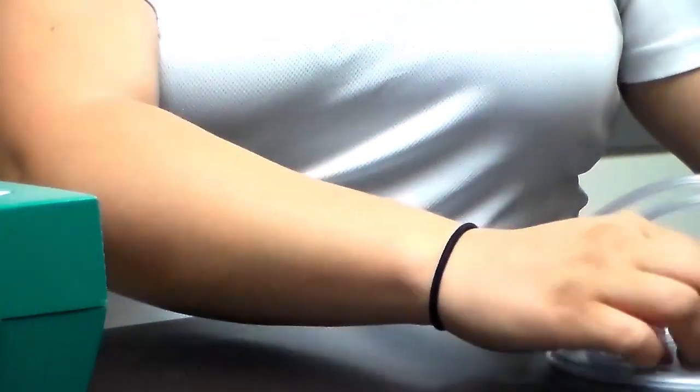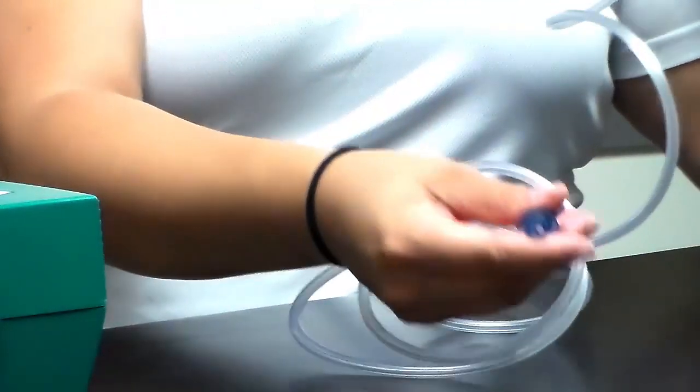Tubing connects the medication well to the nebulizer, which has a space to hold it when it's not in use.